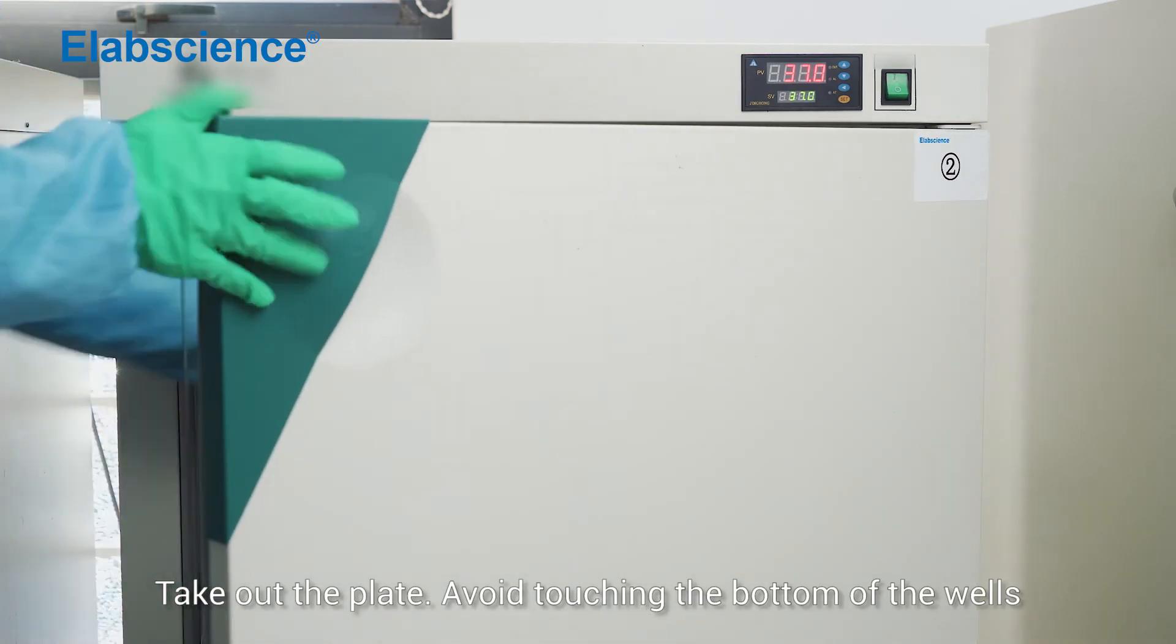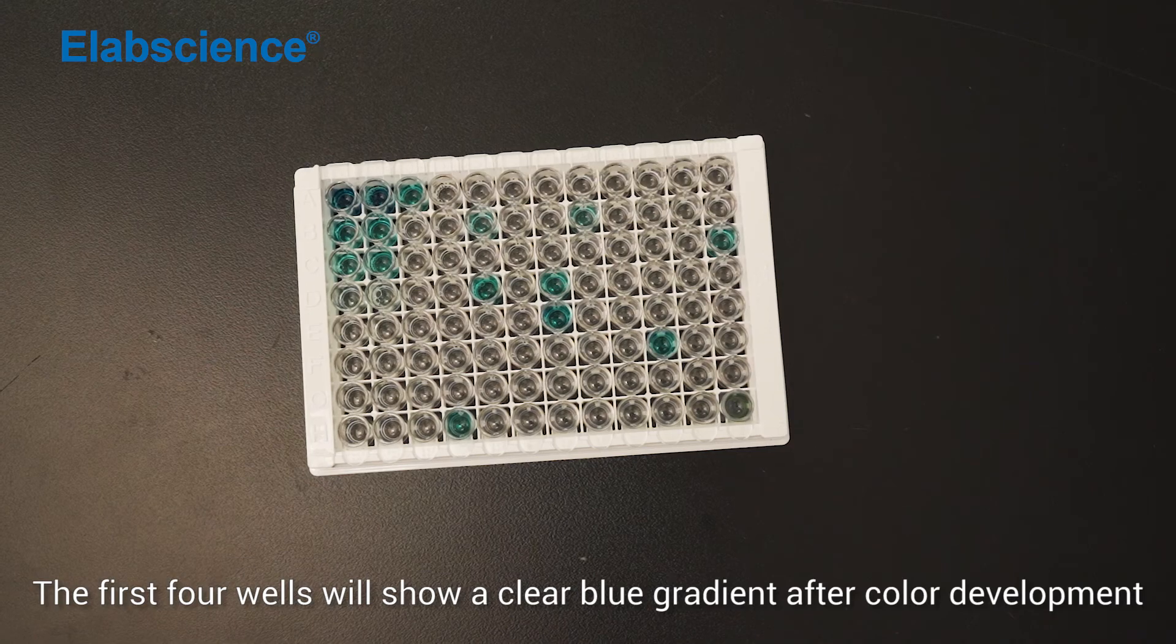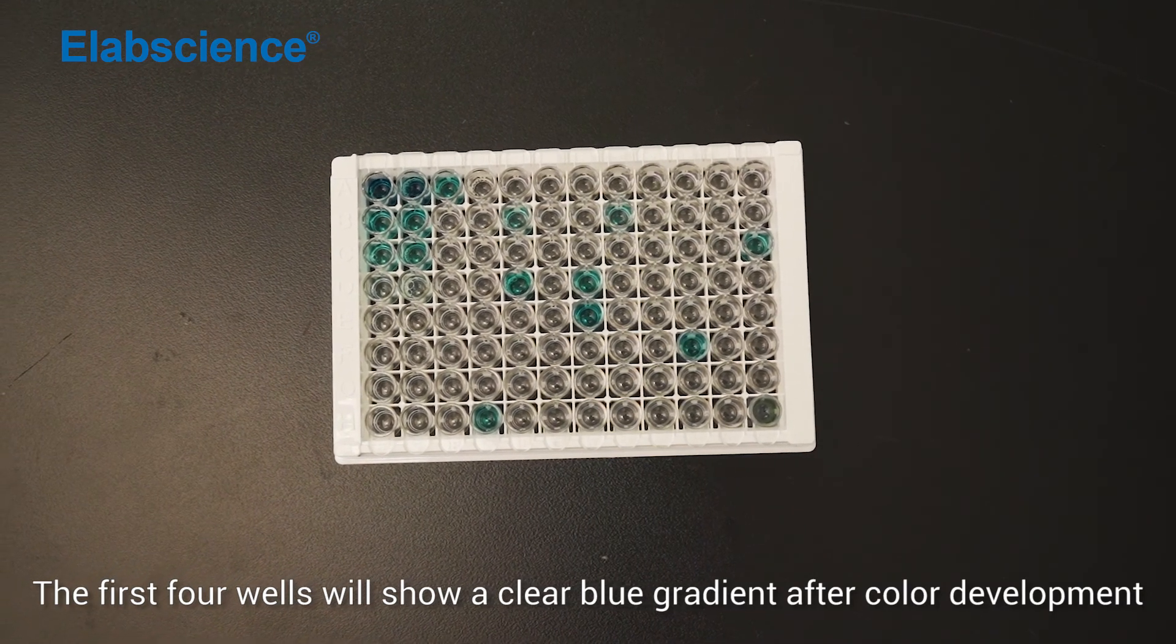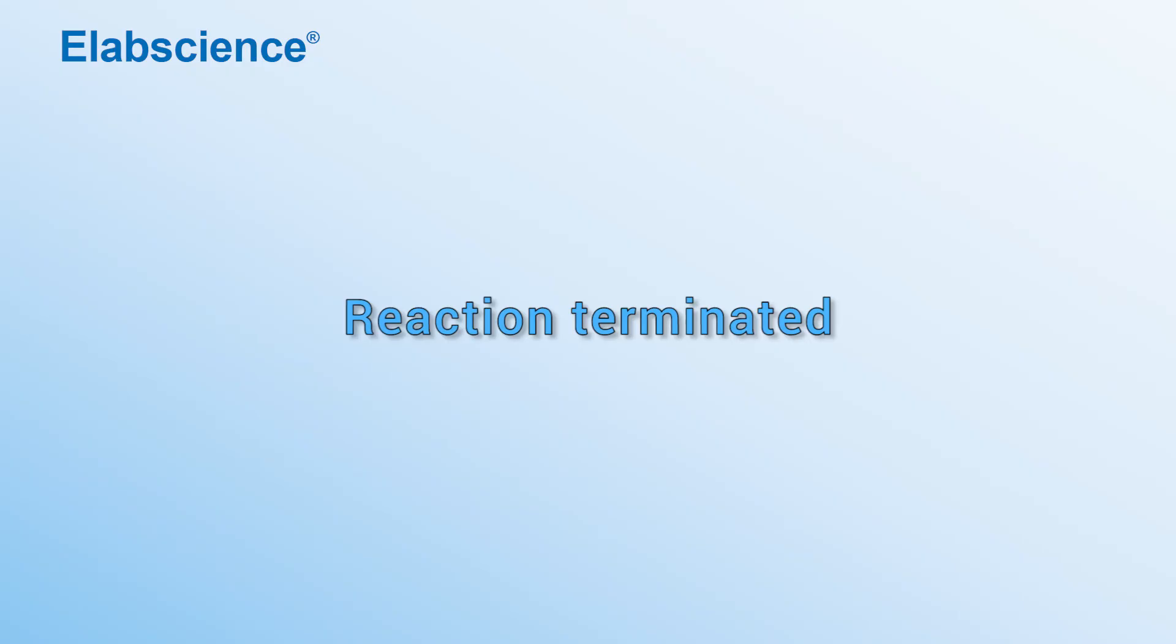Take out the plate, avoid touching the bottom of the wells. The first four wells will show a clear blue gradient after color development.